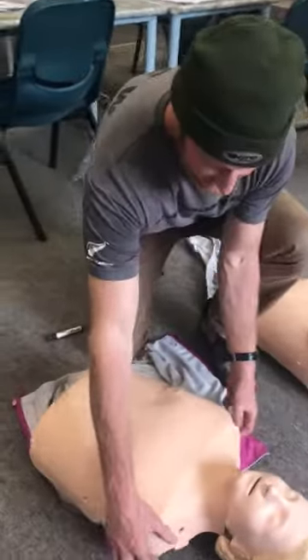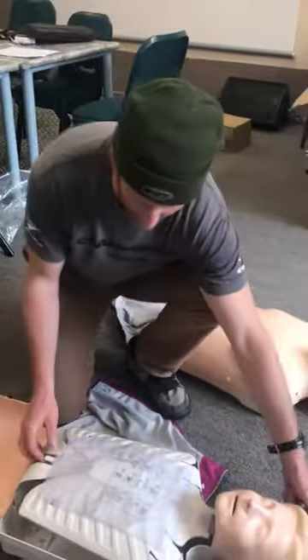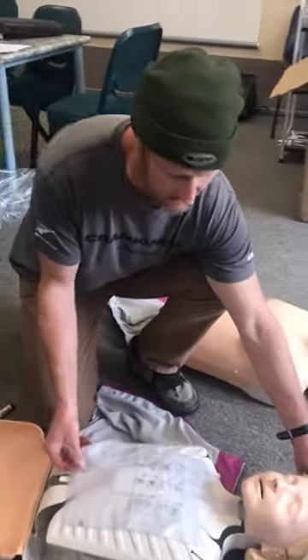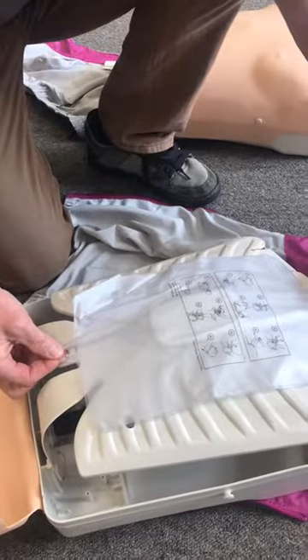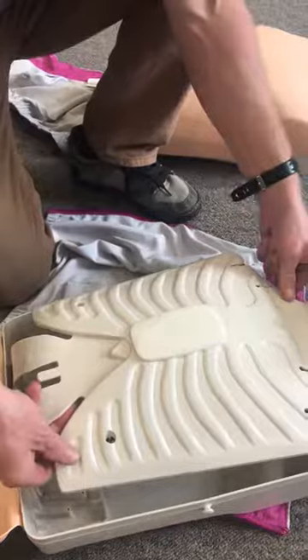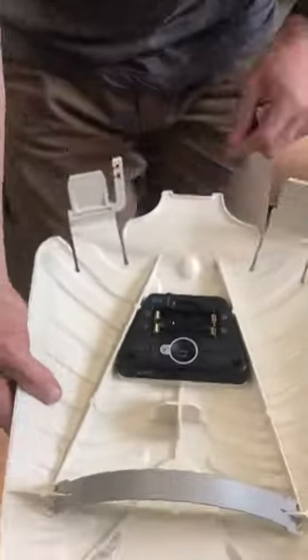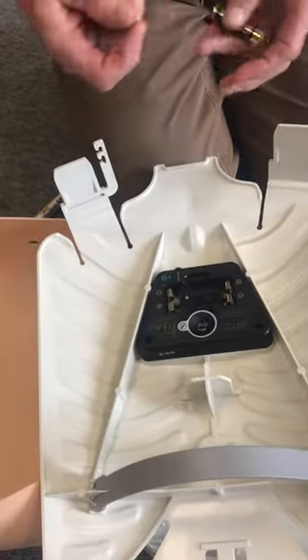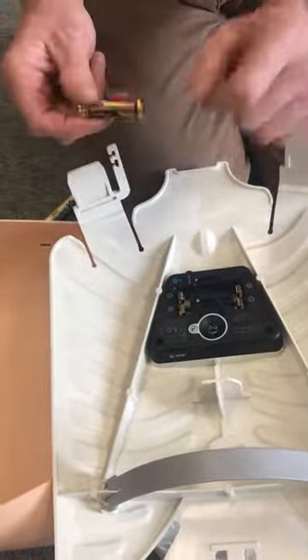As you all know, in order to change the lungs it's the same thing — we just pop the skin off the chest, and we want to undo the lungs. The best way to do that is to tilt the patient's head slightly to unhook the lungs here; if you do it with the head back it tends to tear them. We fold the lungs out of the way and the whole rib cage lifts out. If you flip the rib cage over we'll find the spot for the battery — so if they go flat, we'll be carrying spare batteries with them. This is how to access the batteries.